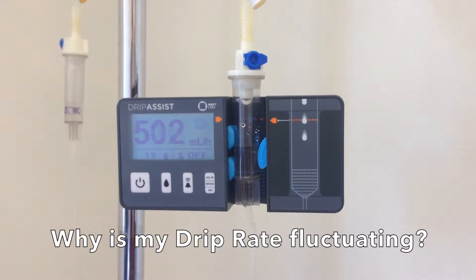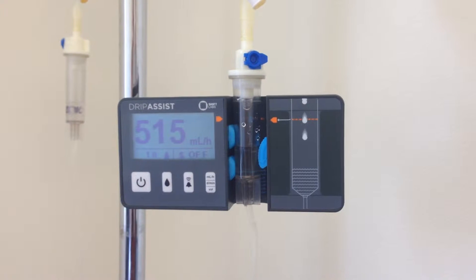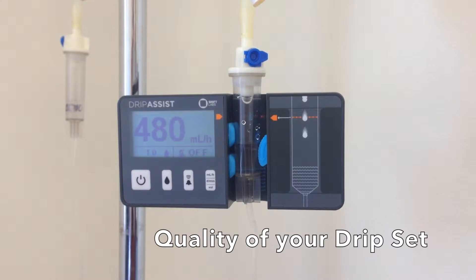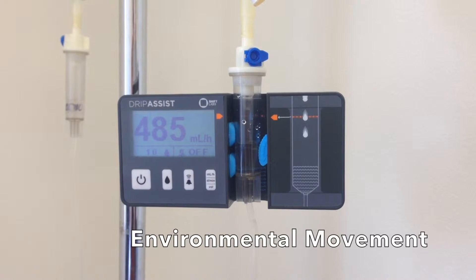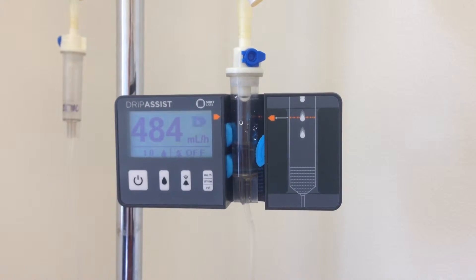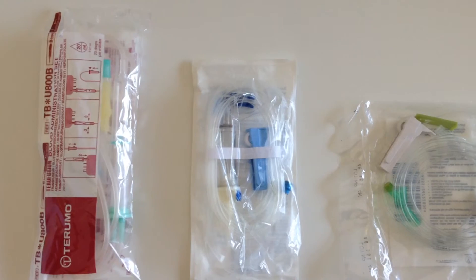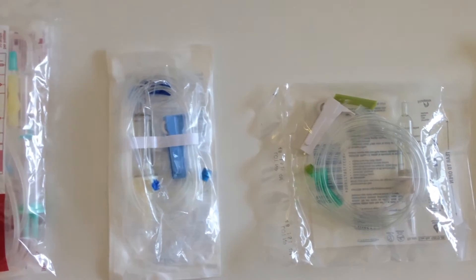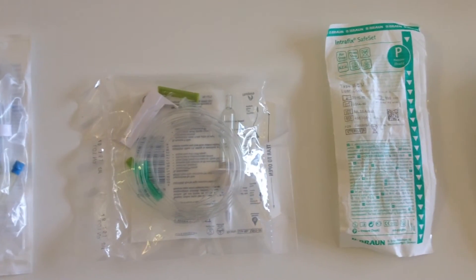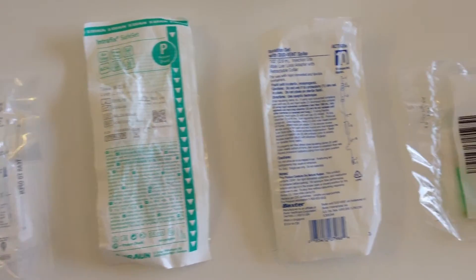Why is my drip rate fluctuating? The drip rate can be affected by a variety of factors such as the size and quality of your drip set, environmental movement, and incorrect placement of the chamber. The drip assist will count every drop regardless of the size and quality of your drip set. Keep in mind that there is a margin of error for every drip set.